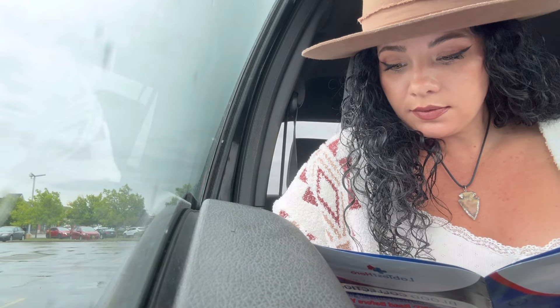This is the at-home Lyme disease test kit. I'm going to take my test now and then get it sent off, and within 48 hours I'll have my results. It tests for the three different strains. All you do is take your blood sample, send it in, and within 48 hours you'll have your test results back. And that's it — it's as easy as that.